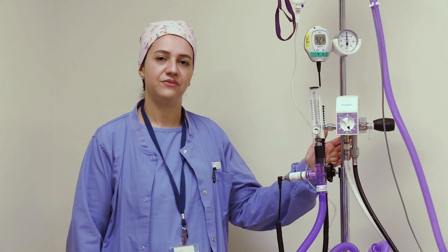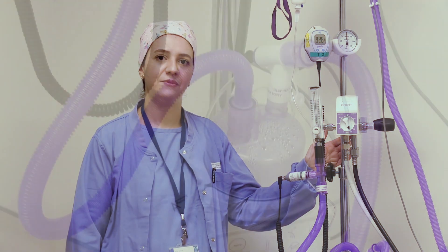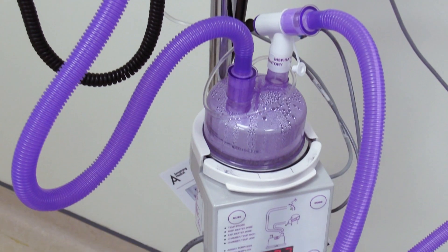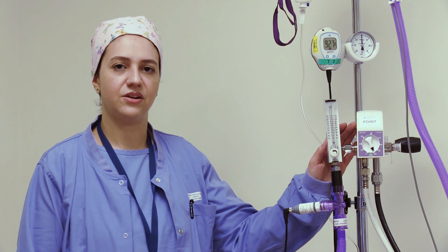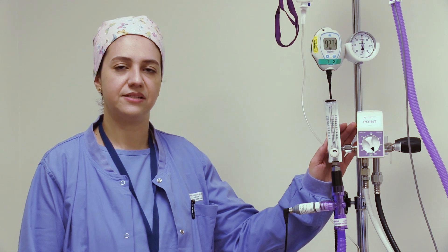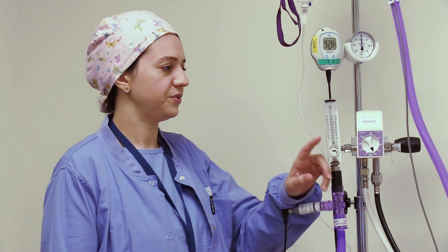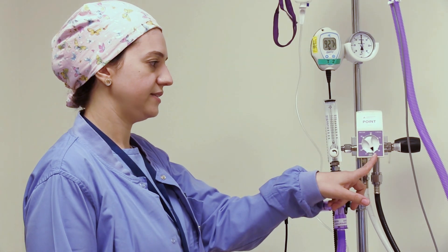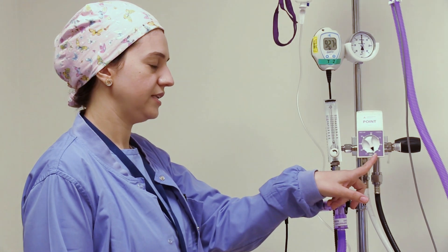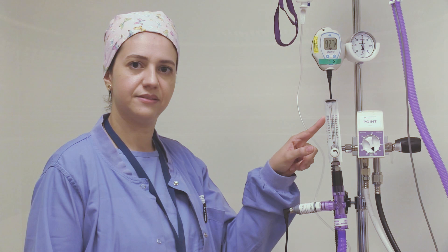Welcome to this demonstration on high flow nasal oxygenation and clinical applications. The high flow nasal oxygenation therapy is an oxygen supply system capable of delivering up to 100 percent of humidified and heated oxygen with a flow rate of up to 120 liters per minute.